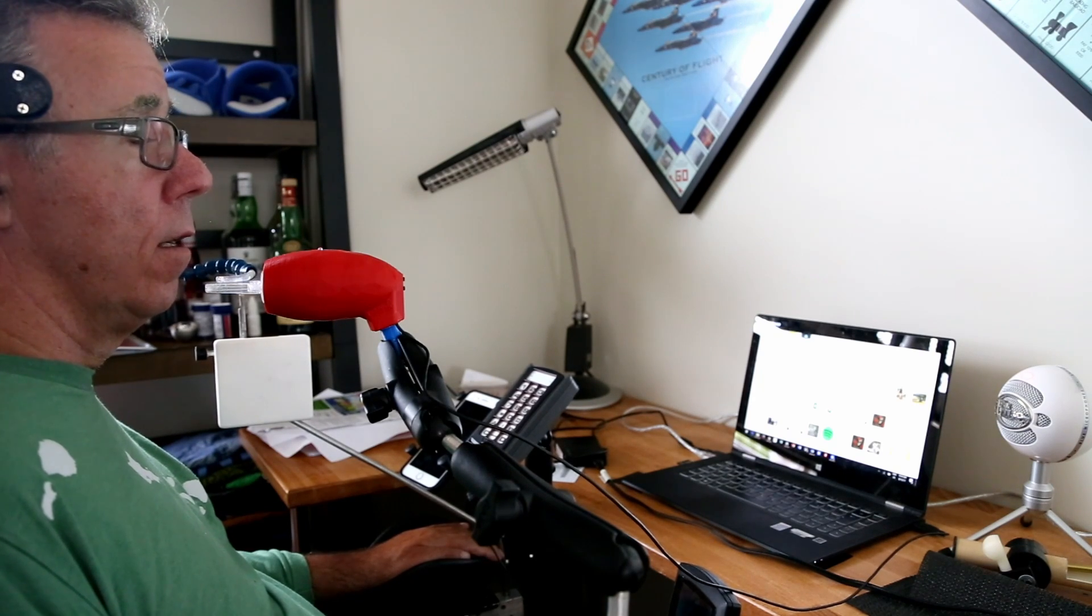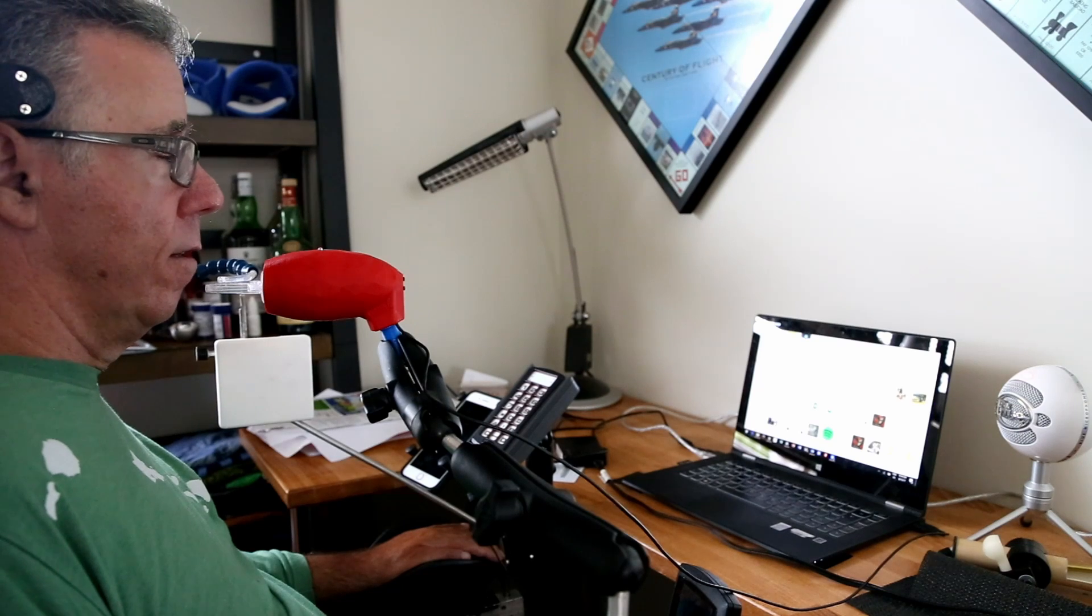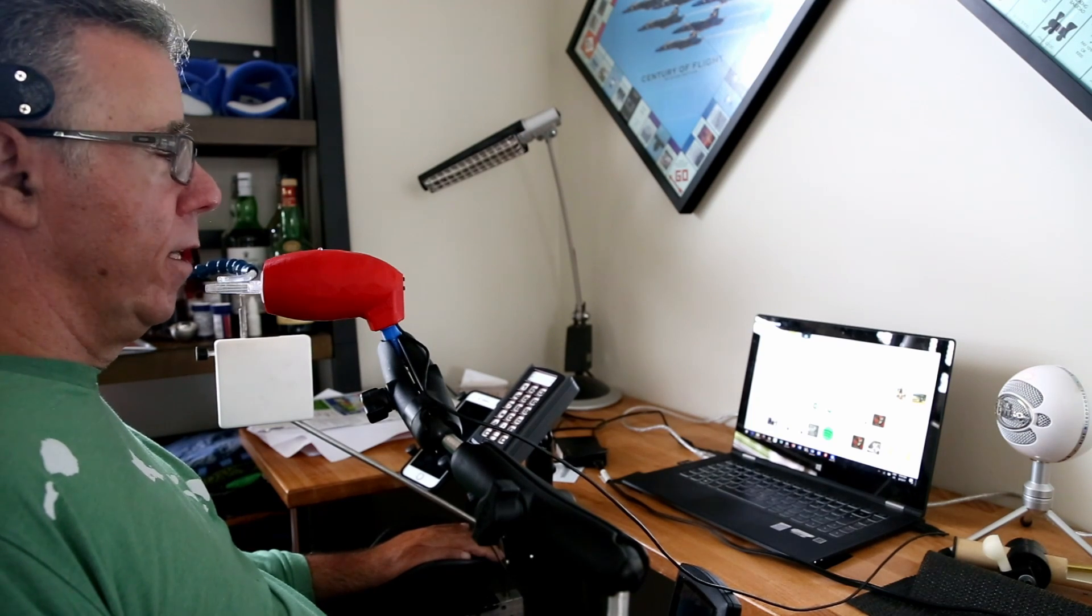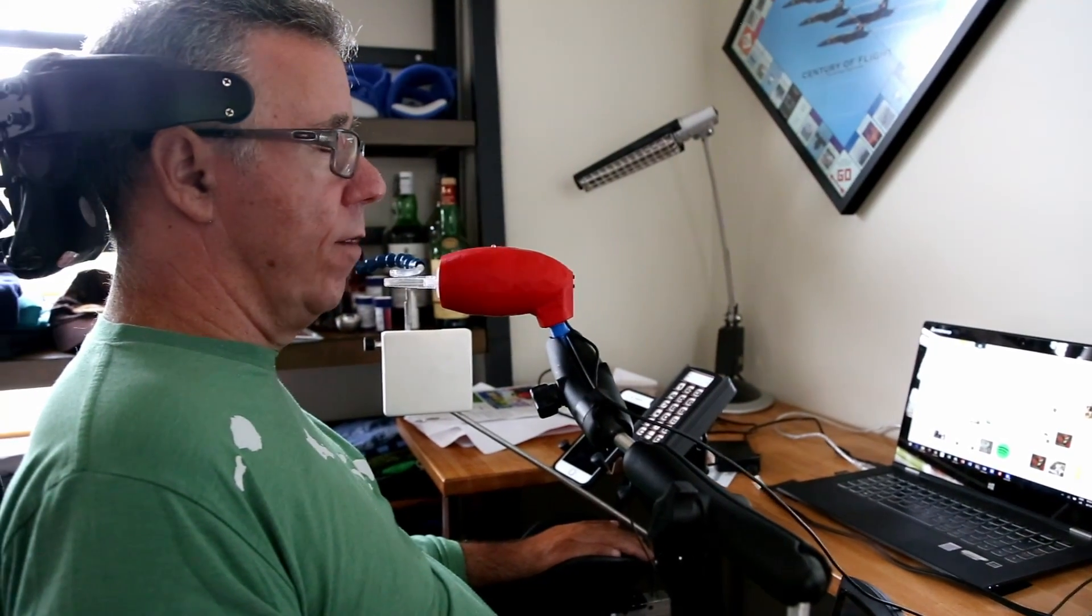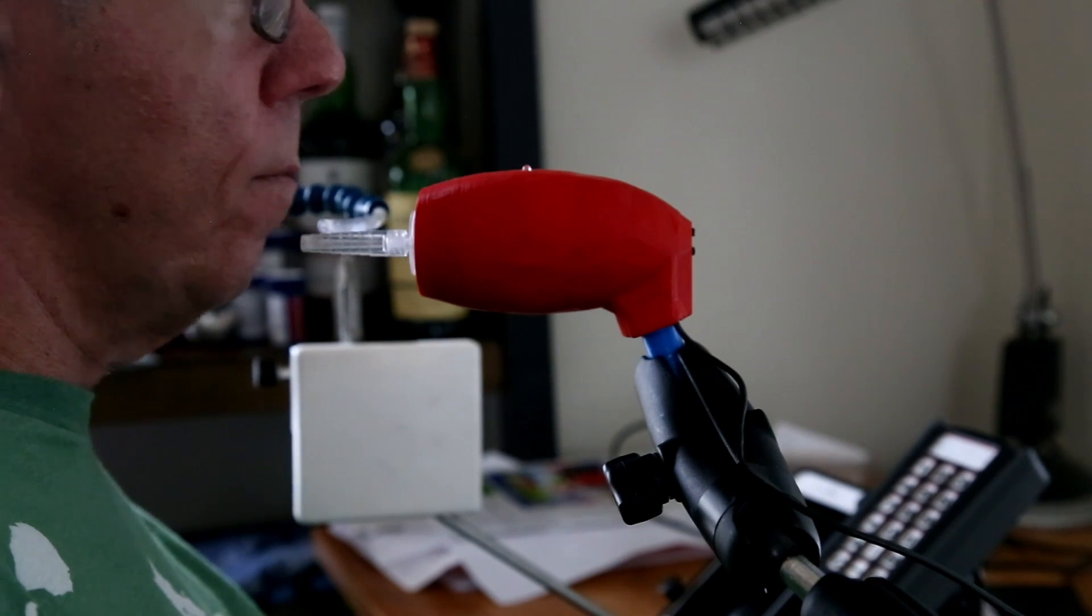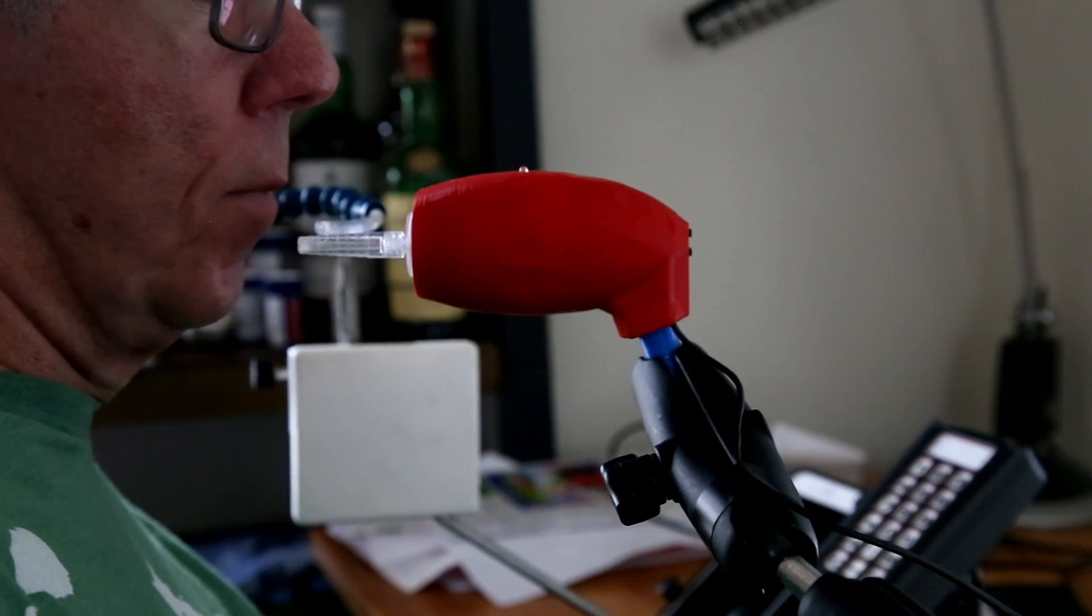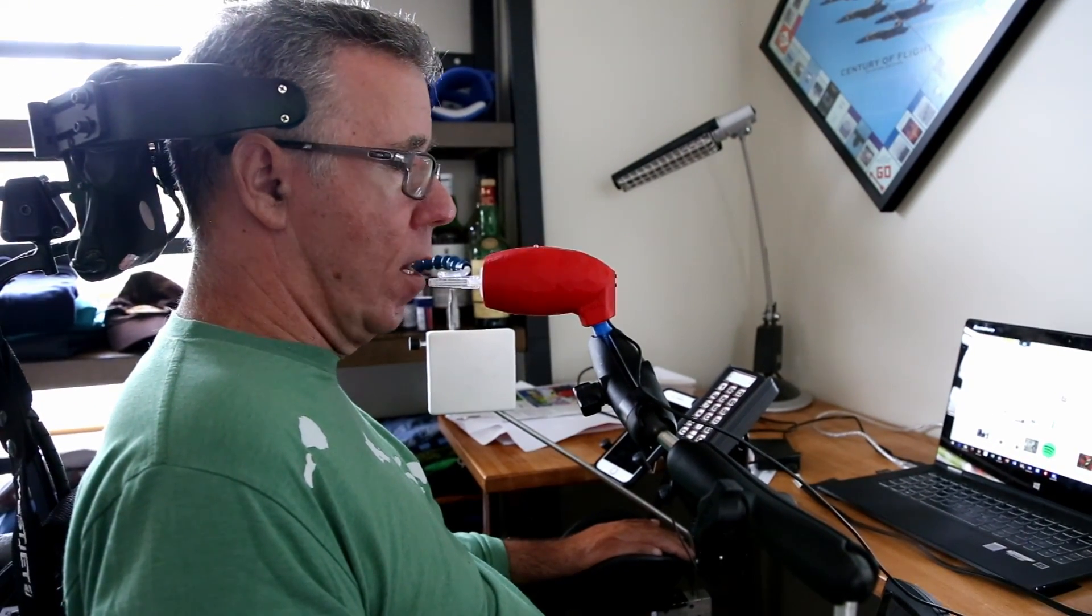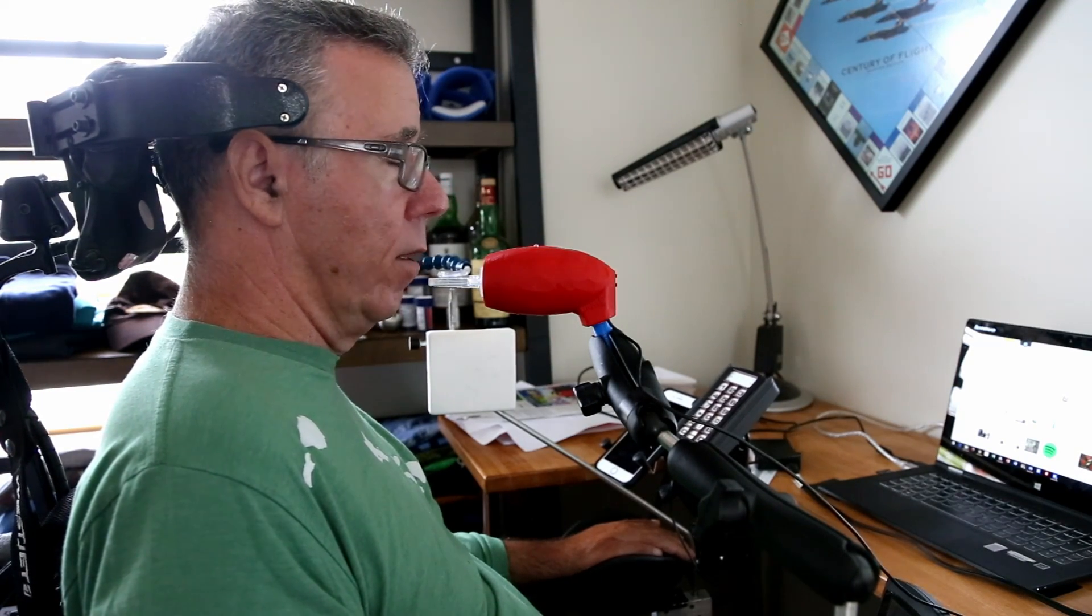So, you're testing it for them effectively? Yeah, effectively. They're giving them out to lots and lots of people. They have build-a-thons, they call them, where they put people together and they bring all the parts and they build them. The red part is just a 3D printed part. You can see the little blue part on the bottom. They have their own mounting system, which I found didn't work at all. It was too limp, too weak. So, this is called a ram mount, which I purchased myself. And I needed that blue piece to be 3D printed. And after a few tries, I got it right. And so, my system is bolted to the table. So, I literally just roll up to it. It's very stable. And I just come to the same position. My table's all set up. And that's a whole different story for me to roll in. And it works really well.